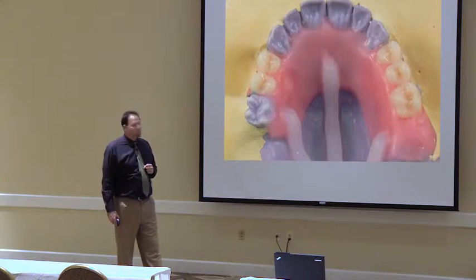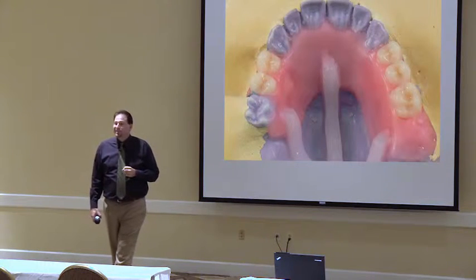These sprues are about three and a half millimeters across, it's 3/16th utility wax, it's fairly inexpensive, it's nice and pliable and really good for a sprue wax. Don't get the red because it will make a mess of your boil out tank, white is much better.